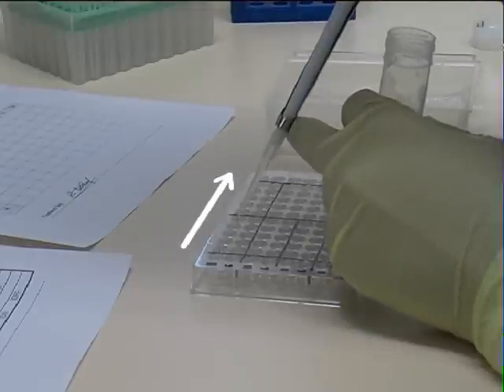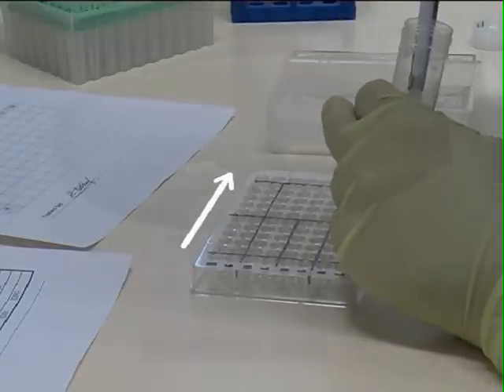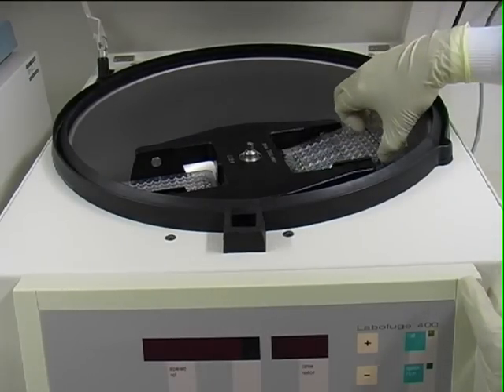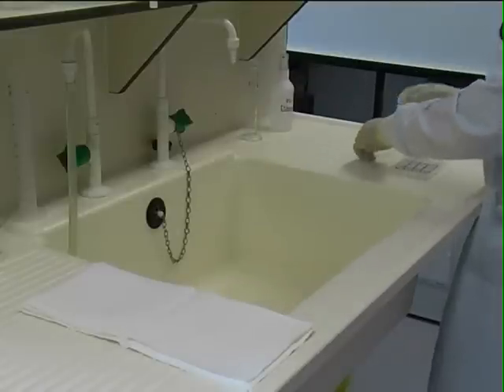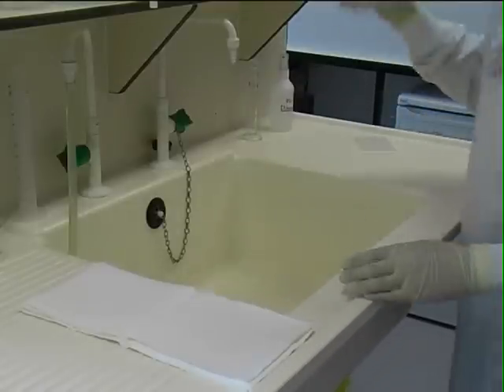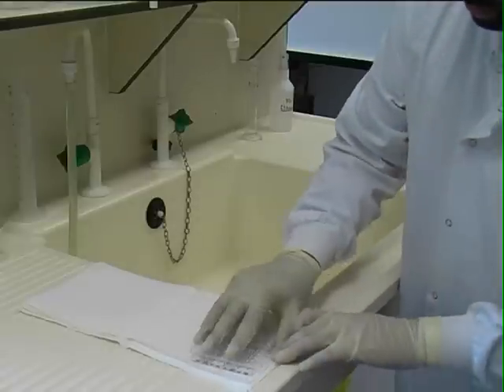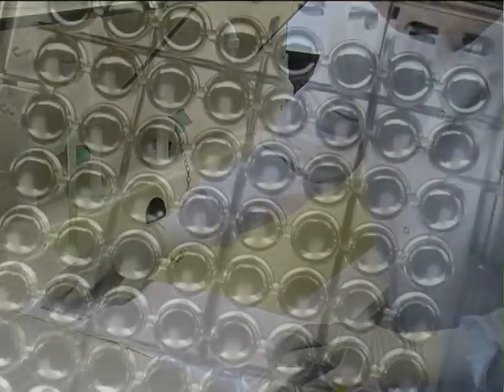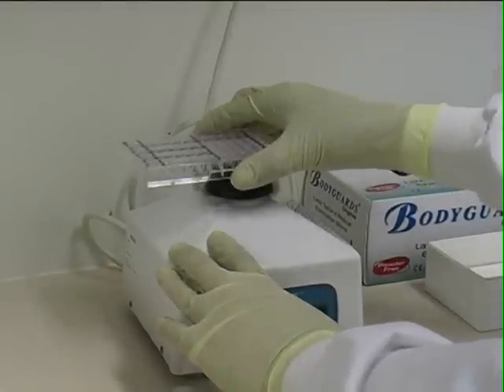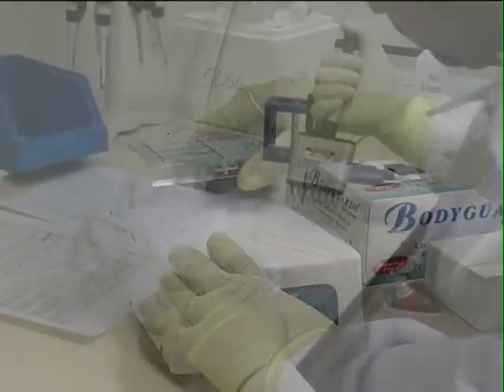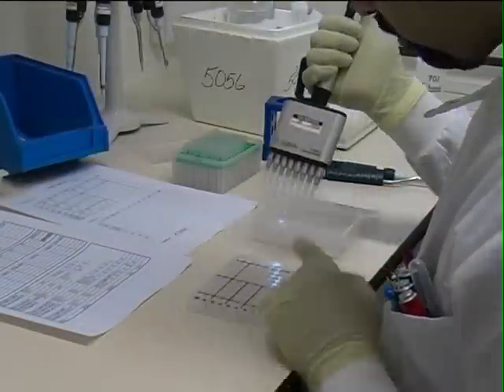Today we are using just two cells. At all stages involving the washing of intact platelets, it is crucial to ensure that all the buffer is removed whilst retaining as many cells as possible.